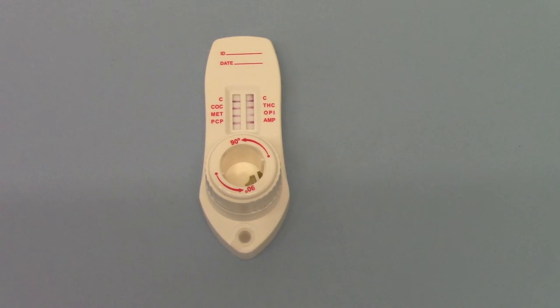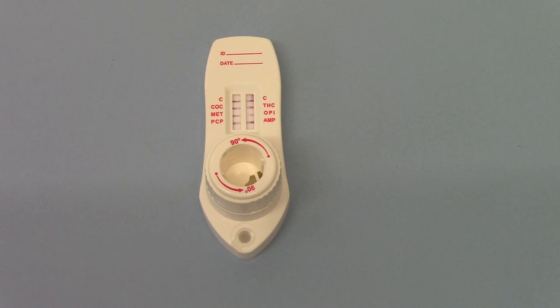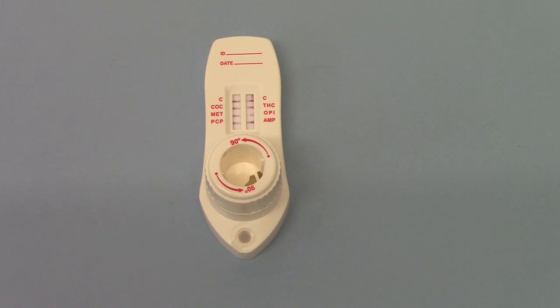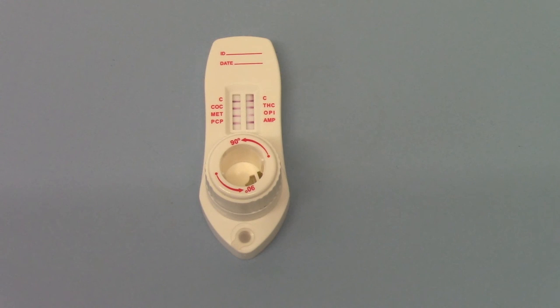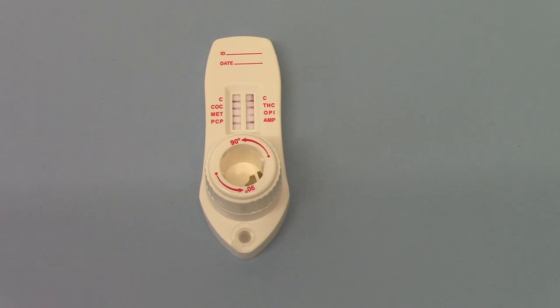So there you have it — the Saliva Twist saliva drug test for six drugs, manufactured for us by Instalert. It's a CE marked, professional quality piece of in vitro diagnostics for saliva testing and screening for those common six drug groups.